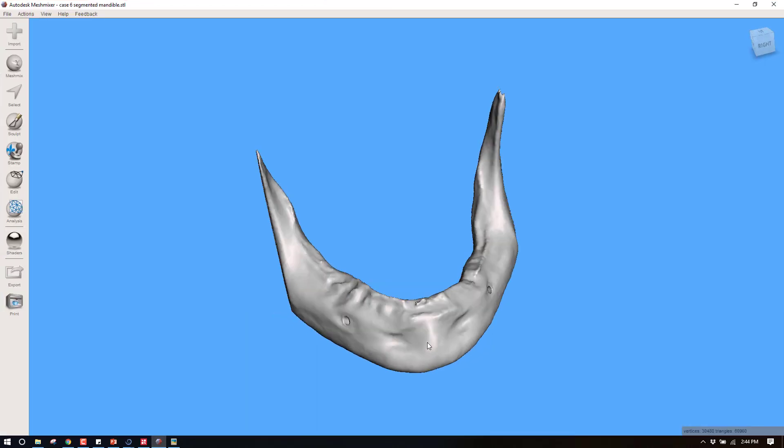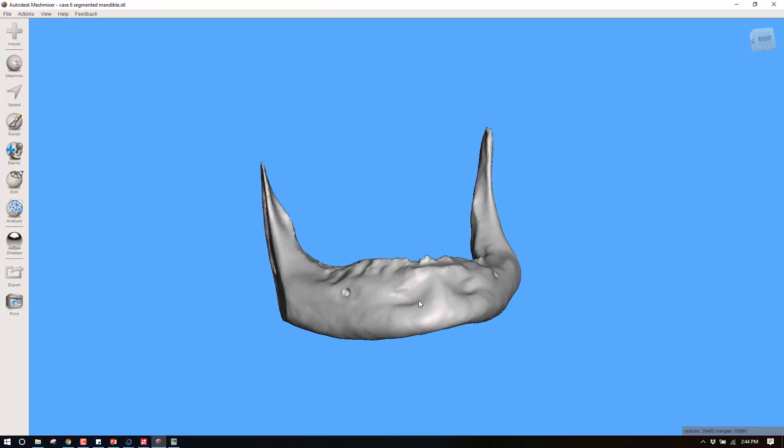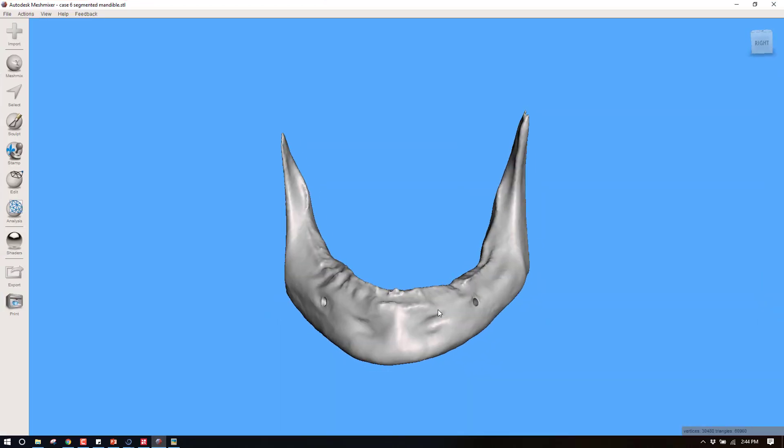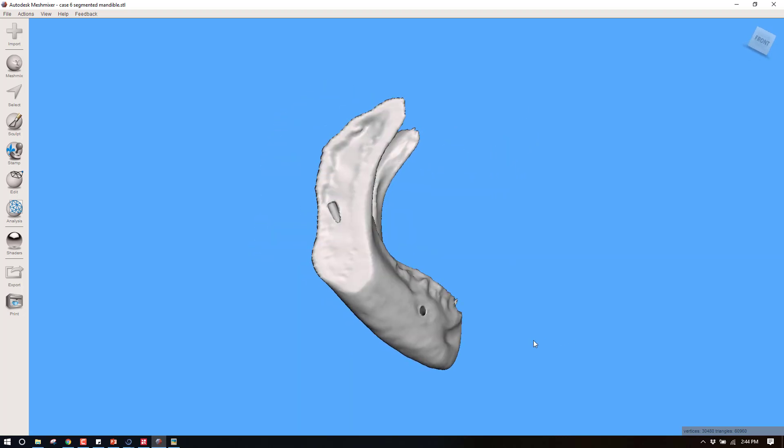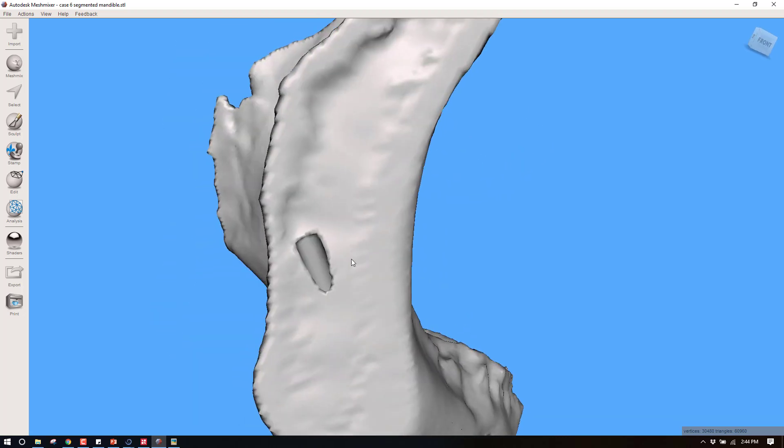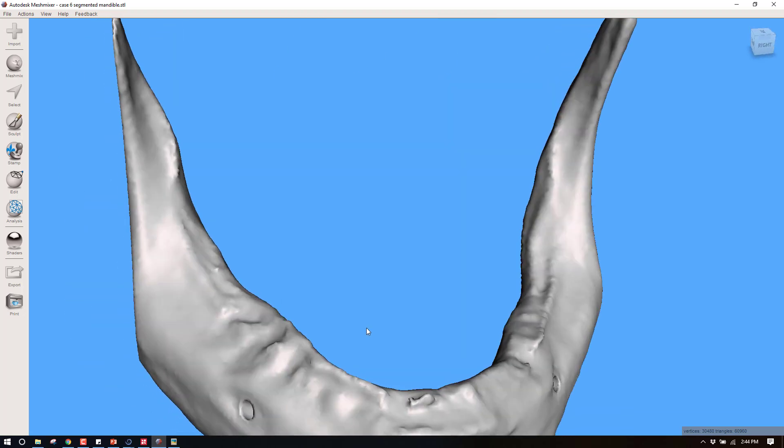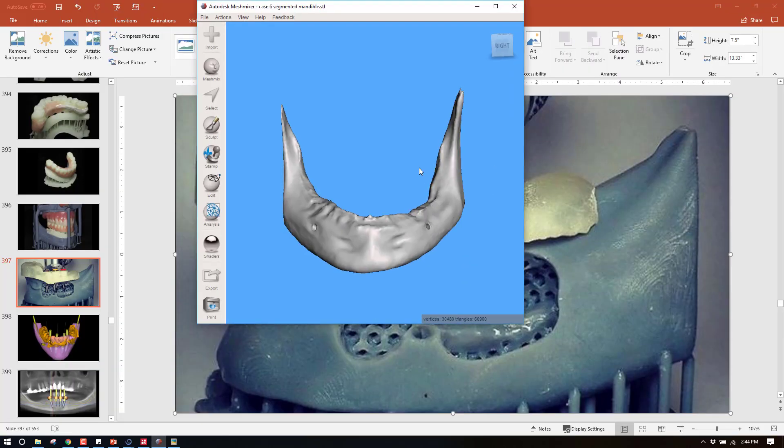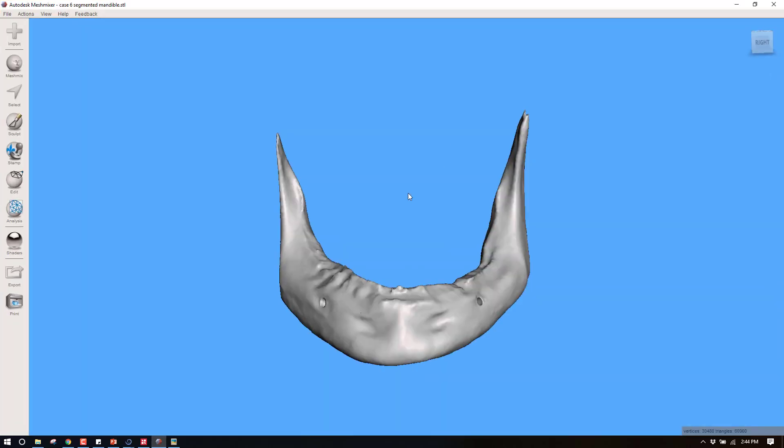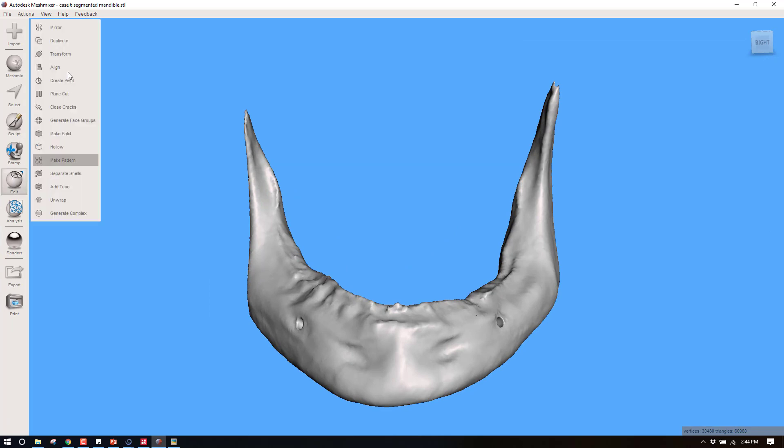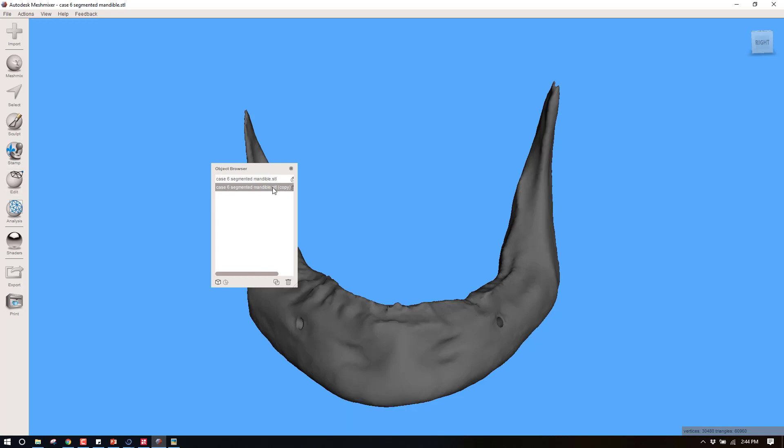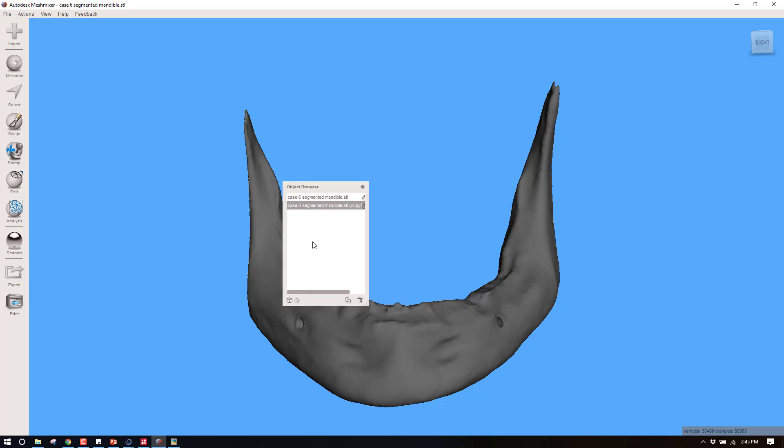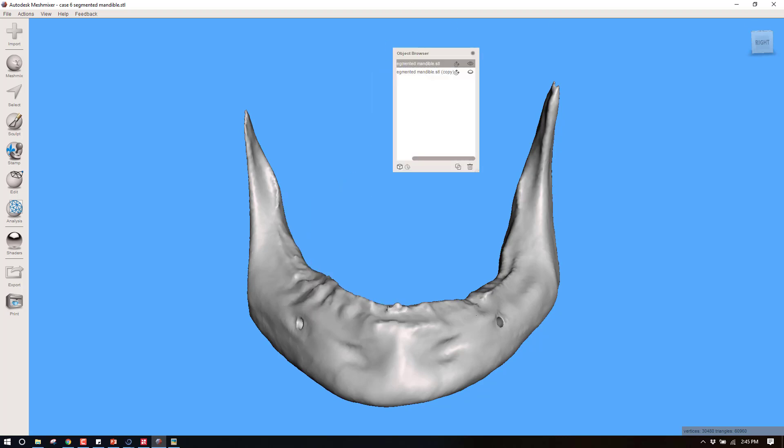In this demonstration I'm going to show you on a mandible which I've done the segmentation on. This is a mandible that I've subtracted out the nerve, so the nerve has got a tube in this. First thing that I'm going to do in these cases is always go to Edit and Duplicate. I always want to have one that I can come back to that has been unaltered. Let's minimize one of these where it's not visible, and the one that we're going to start with here I'm going to edit and then say Hollow.